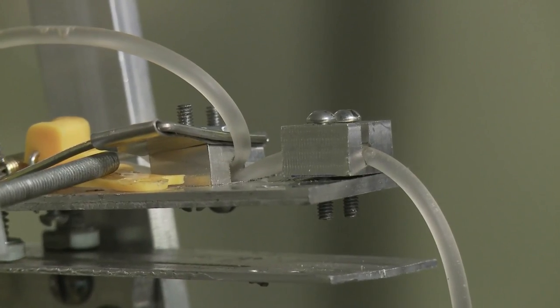Our professor last semester really loved the idea of having a mousetrap, especially on a medical device. It's not something you would really associate with in a hospital or anything.